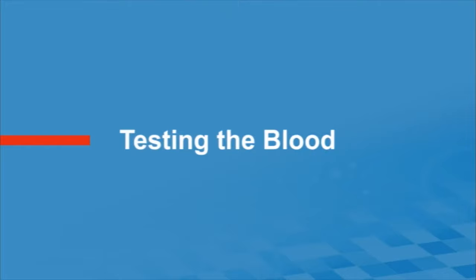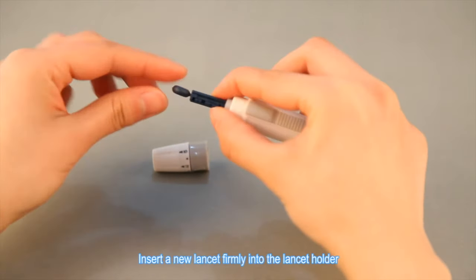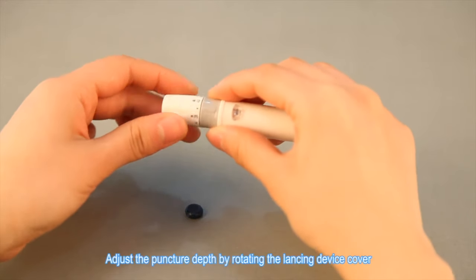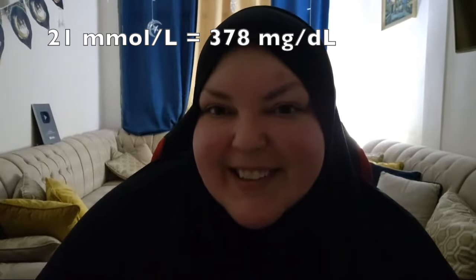If you don't work I'm not doing it. The video says: 'Unscrew the lancing device cover, insert a new lancet firmly into the lancet holder, twist the safety tab off carefully, screw the cover back on, adjust the puncture depth, pull the cocking barrel back until it clicks — the device is now loaded and ready for obtaining a drop of blood.' What the hell — it can't be that high! It says 21. That's high, that's really high.